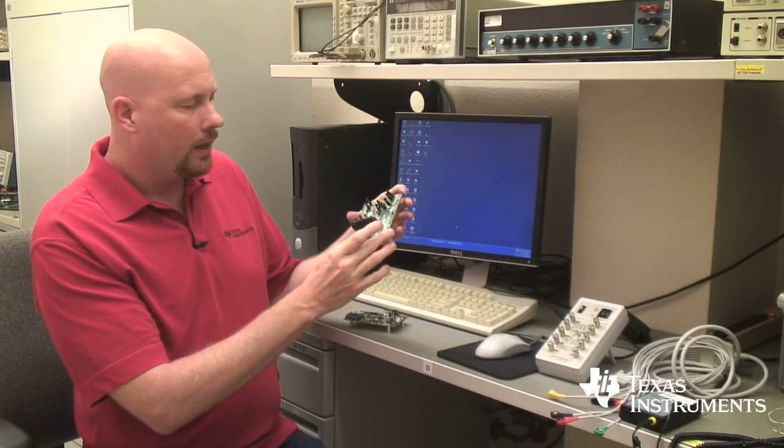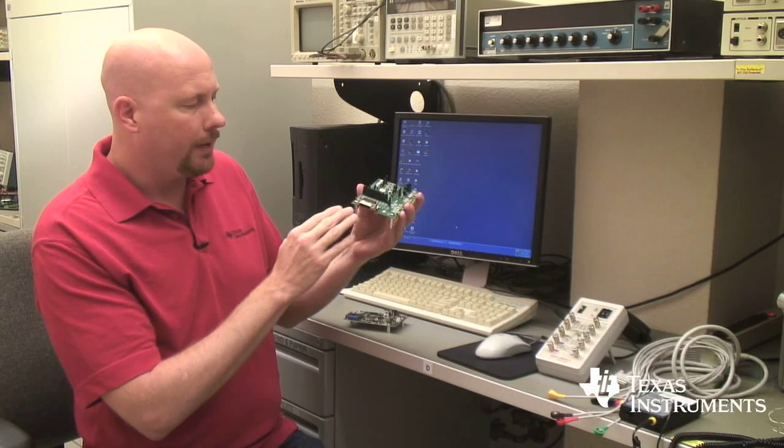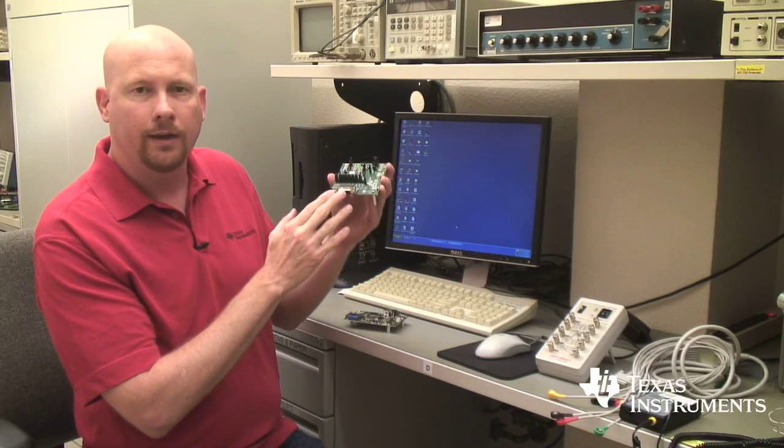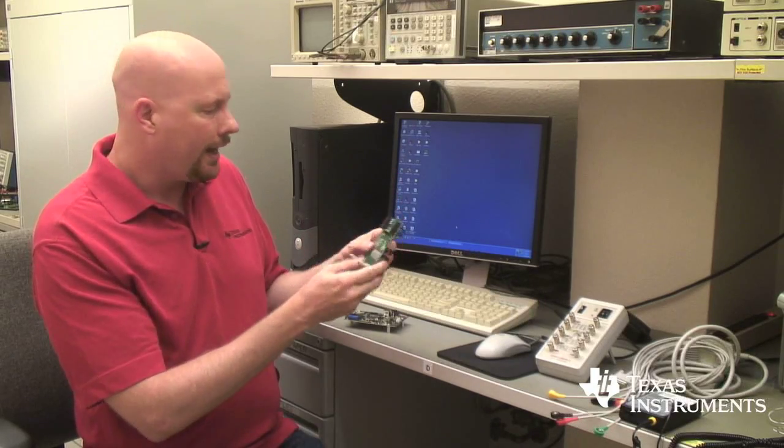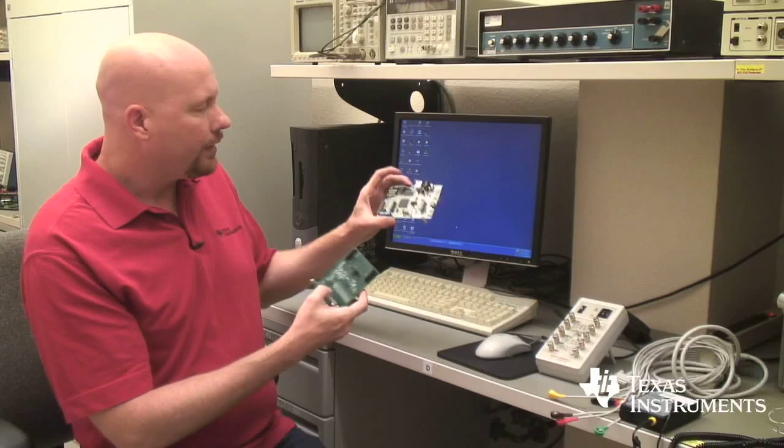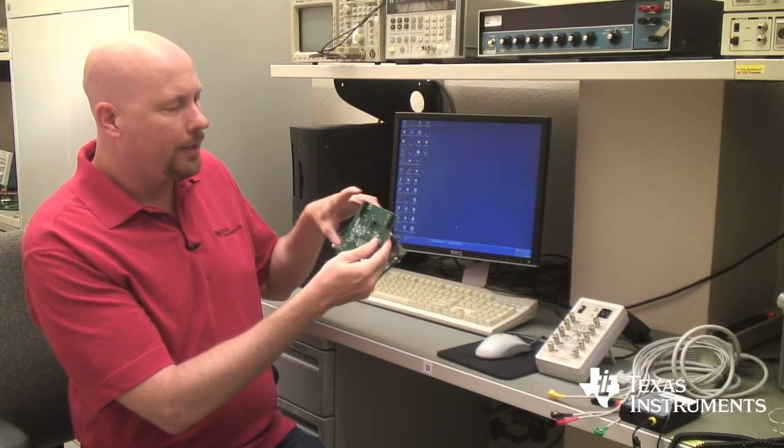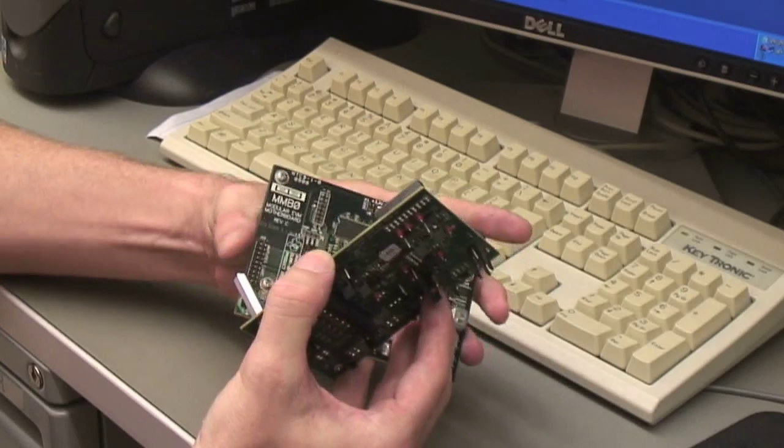All of the inputs into the device can be accessed through the 15 pin D connector at the end. The way these two boards connect is through a series of pins and pin sockets and so they connect up like this.